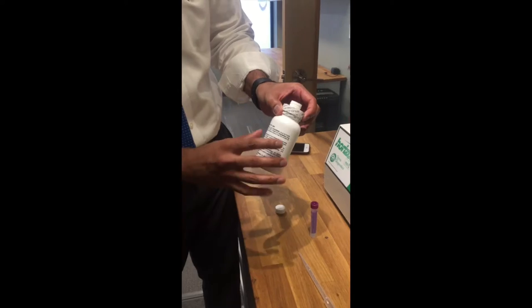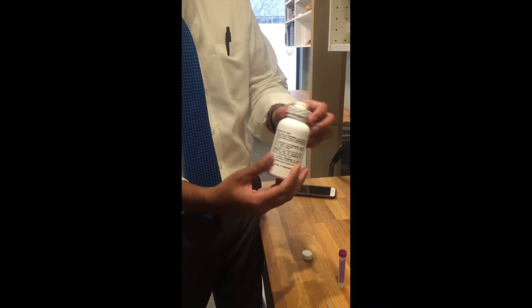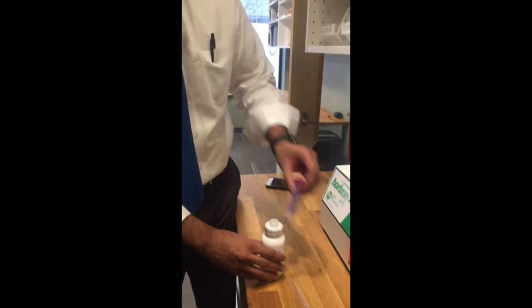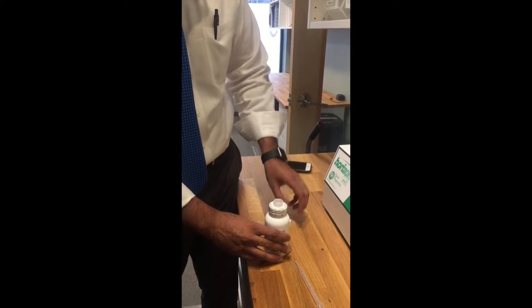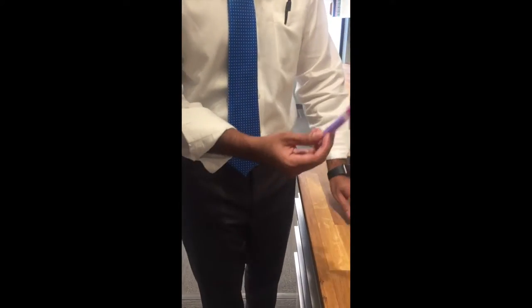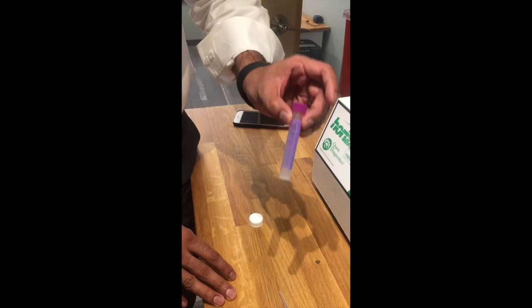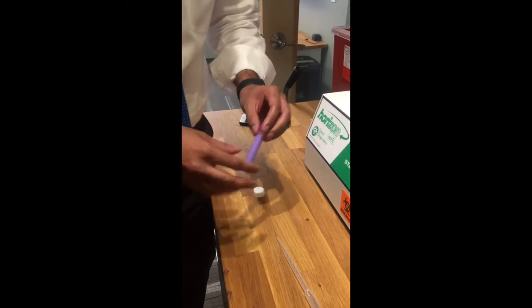Remember, this is frozen. If you shake it and you don't hear the fluid swooshing, that means it's frozen. Once we get the plasma out, we're going to put it in here and it'll be ready for transport. It needs to be frozen before you put it in — so you've got to put this in the freezer first, separately, and then put it into the transpac when it's ready for pickup.